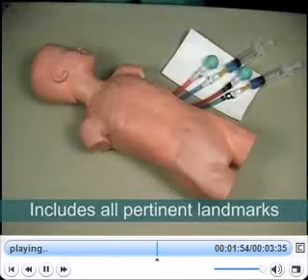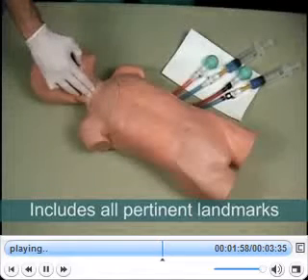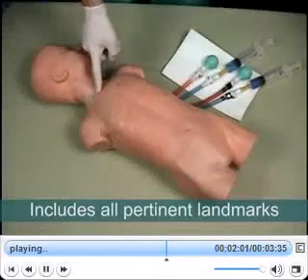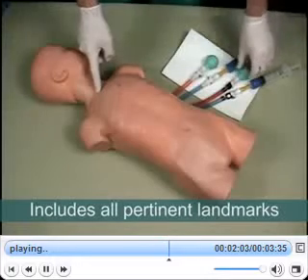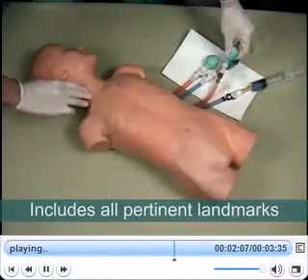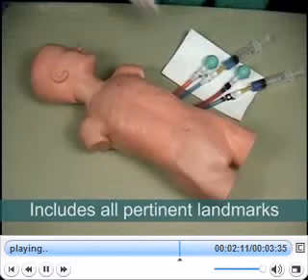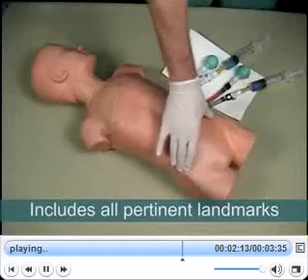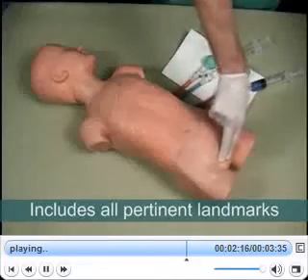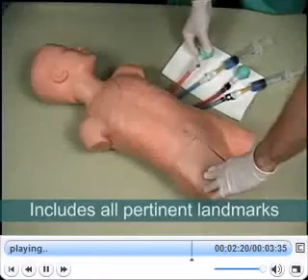For the internal jugular site, the user will be able to locate the apex of the triangle formed by the two heads of the sternocleidomastoid, the clavicle, and the pulse of the carotid artery. For the femoral vein, the landmarks include the anterior superior iliac spine and the pubic symphysis. The user will also be able to locate the pulse of the femoral artery and the inguinal ligament.